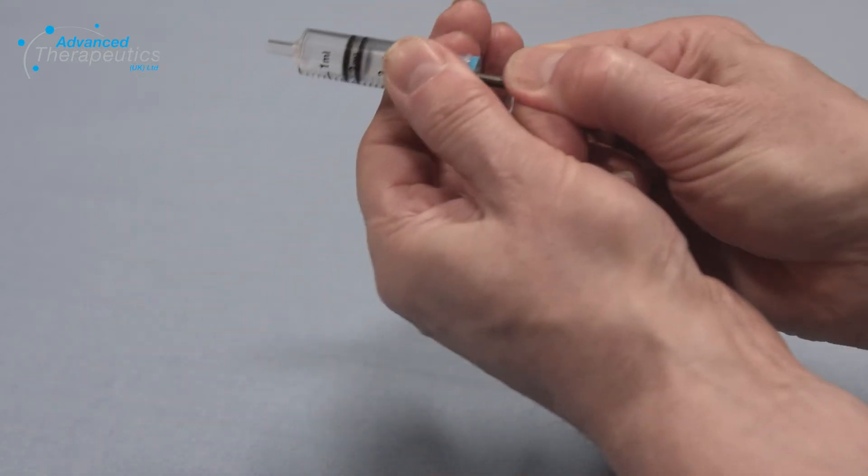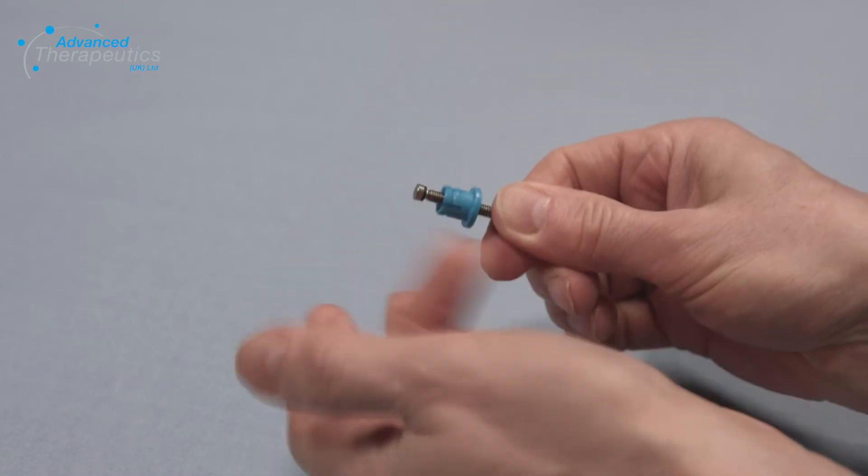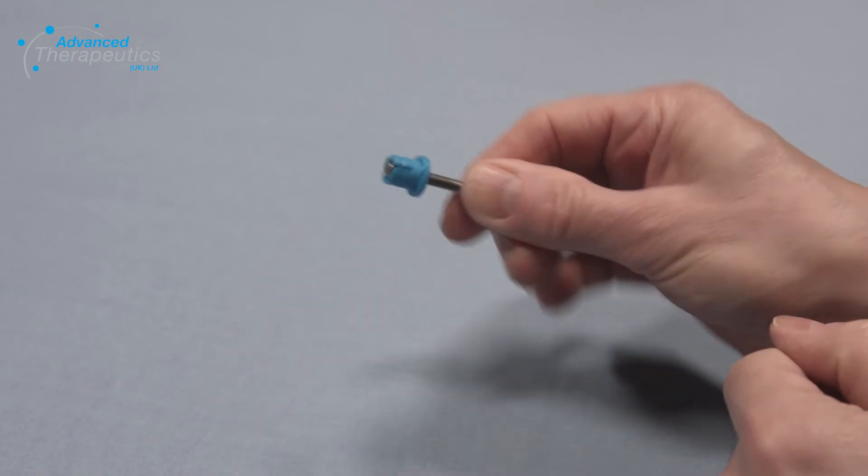Remove the linking screw from the old reservoir. A linking screw can be used for up to one year. After you've removed the linking screw, ensure that the blue top hat spins freely and that it is flush with the top of the linking screw.